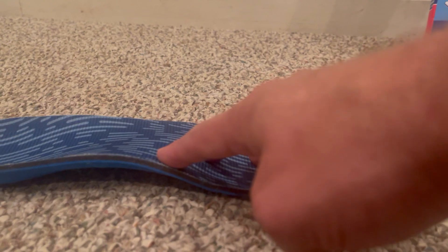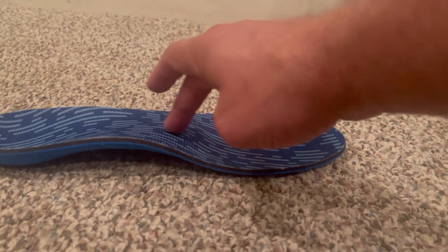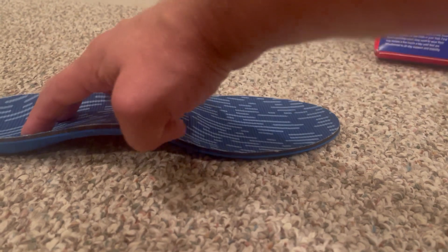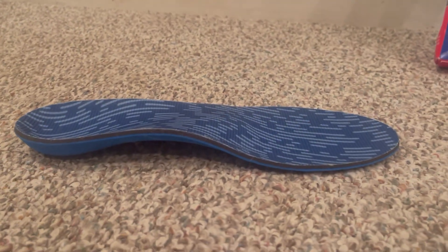I have loved this product and I really would recommend it — for the support and the areas it helps to alleviate, like the ball of your feet. As far as the heel, it really cushions and creates a solid foundation. So I would highly recommend it.